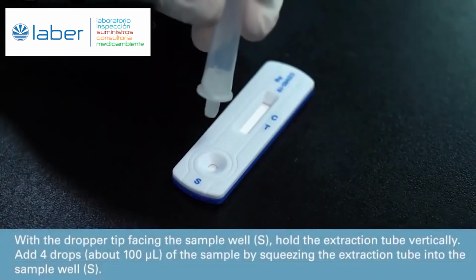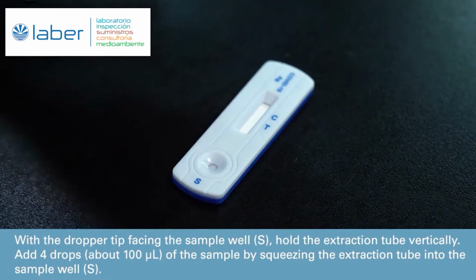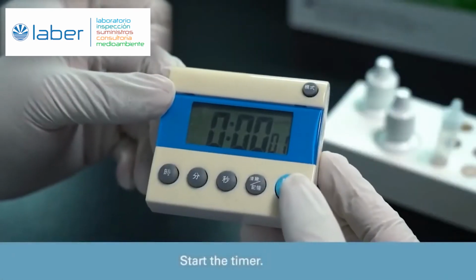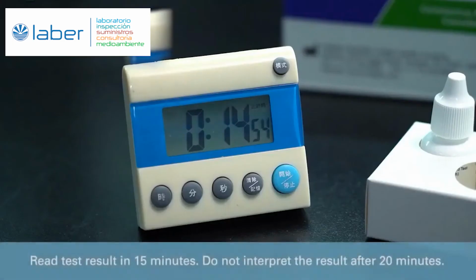With the dropper tip facing the sample well, labeled S, hold the extraction tube vertically. Add 4 drops, about 100 microliters, of the sample by squeezing the extraction tube into the sample well. Start the timer. Read test result in 15 minutes. Do not interpret the result after 20 minutes.